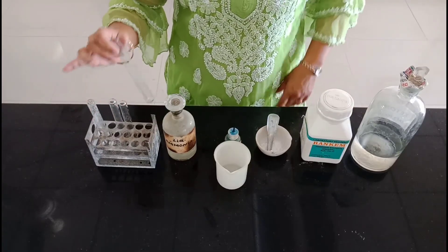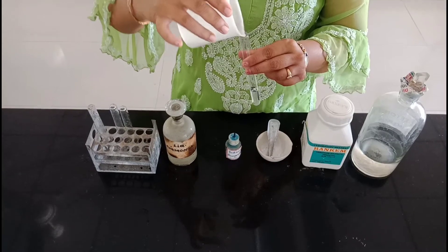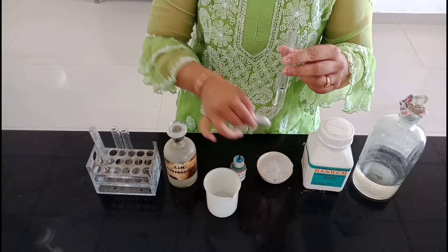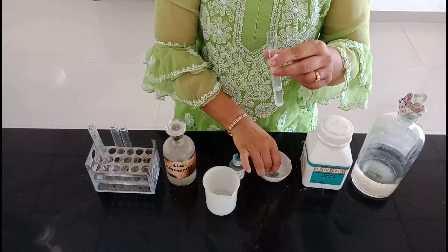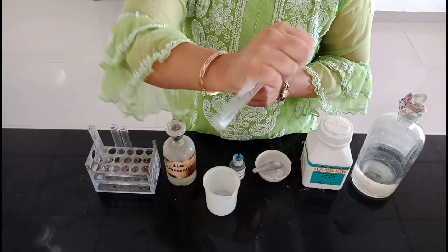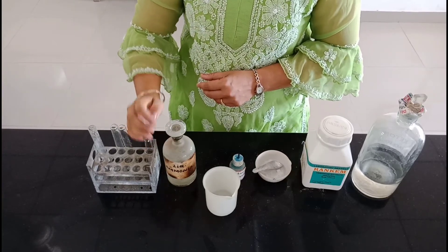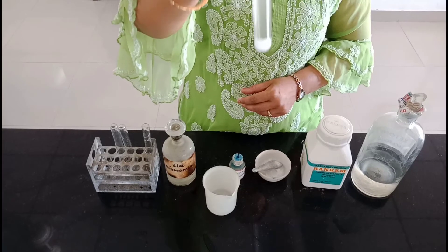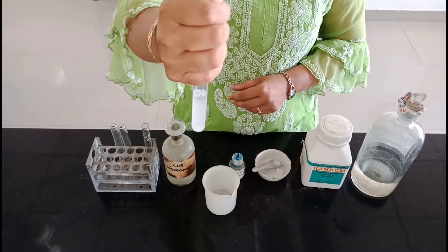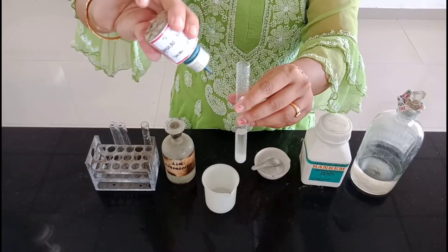Now we'll see the procedure. First, take 5 ml of urine sample and saturate it with ammonium sulphate powder. We have already done it in the other test tube. Now add 3 drops of sodium nitroproside and mix it.